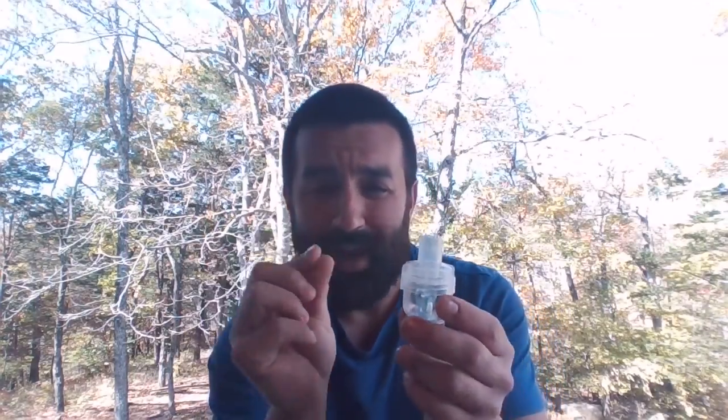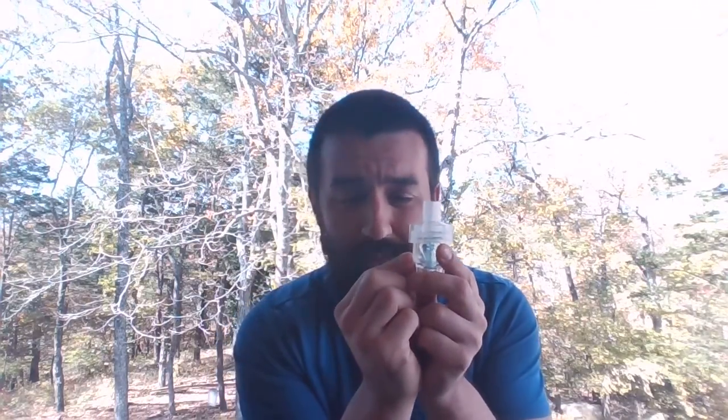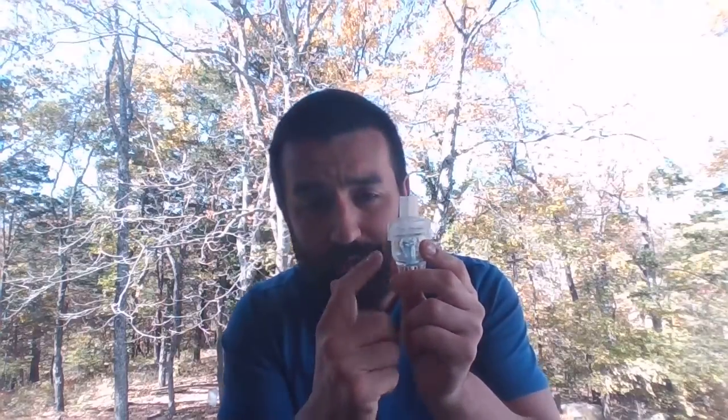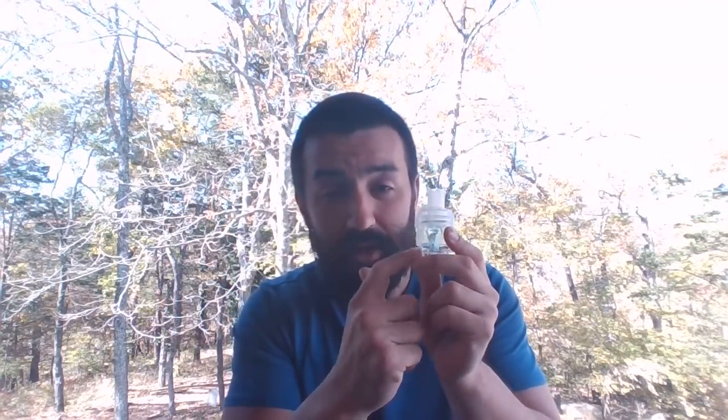If I only squirted a tiny little half mil or 1 mil inside of this thing, there's going to be waste, okay? There's going to be residual or dead volume that stays in this nebulizer at the end of the treatment because it's not able to be pulled into suspension. There's always going to be something left. So by adding normal saline, or sometimes you'll have some of the drugs come pre-mixed for a total volume of 3 mils, by getting a sufficient total fill volume, we're actually making more of that medicine available to that patient.